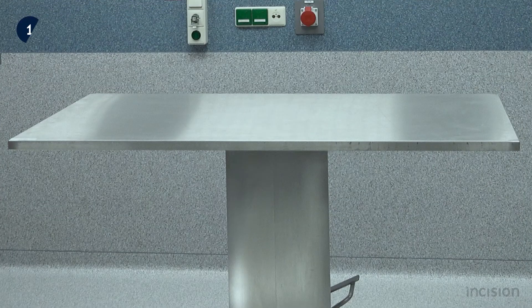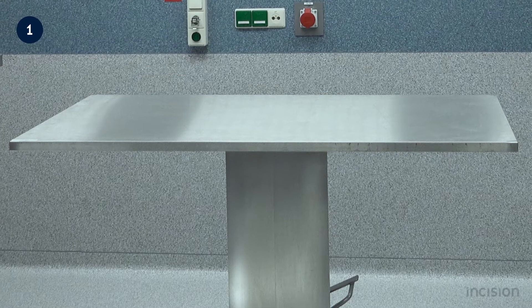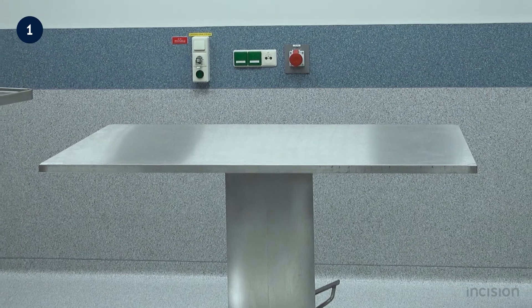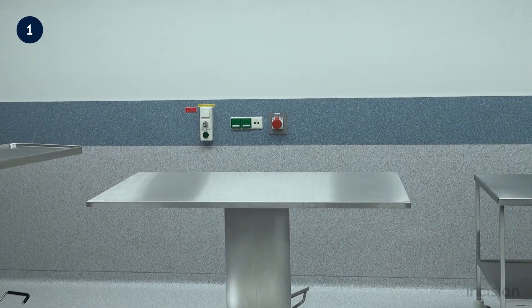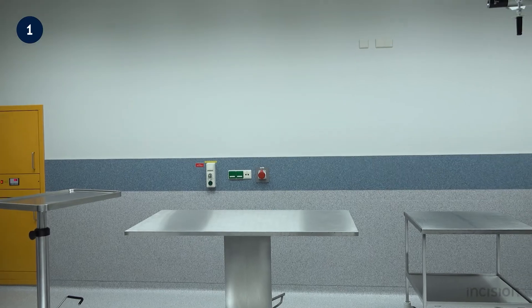The objective of table setting is to create a sterile field upon which surgical implements and instruments can be placed and accessed during a surgical procedure.